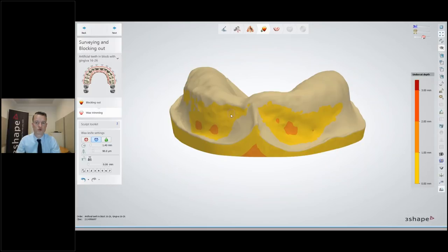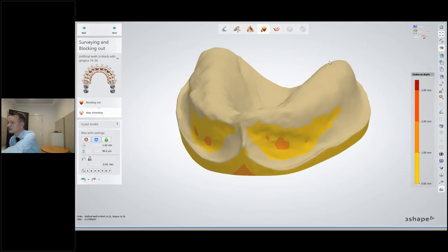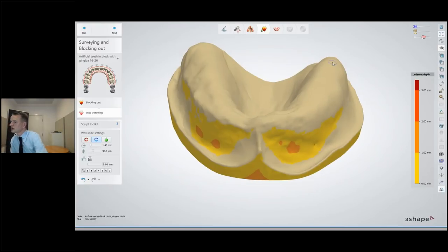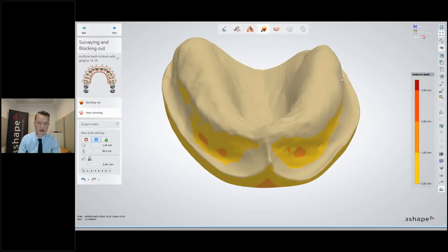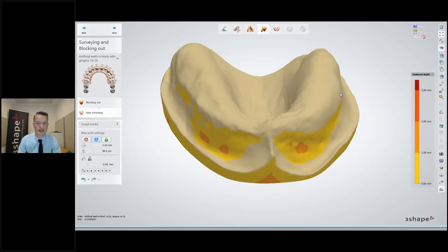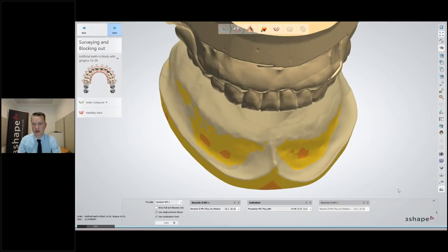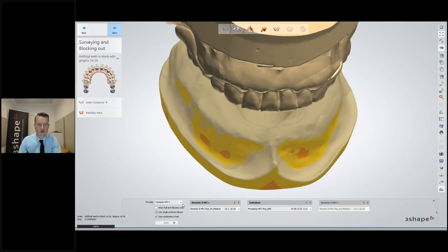The next step is marking the denture base boundary — you mark the outer boundary, grab the points, and move them forward and backward to set the exact denture base. The next step is the insertion direction of the denture — you can see a visualization of undercuts with undercut depth. You can put block-outs and block-out angles in, and even do wax trimming — adding block-out wax and so on.